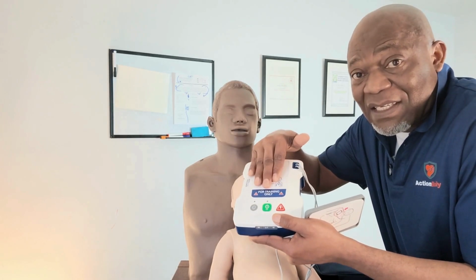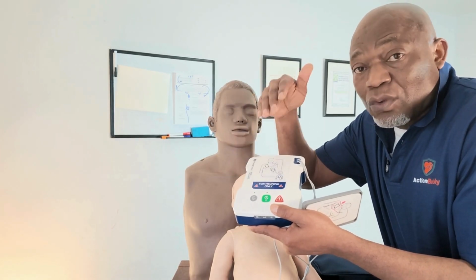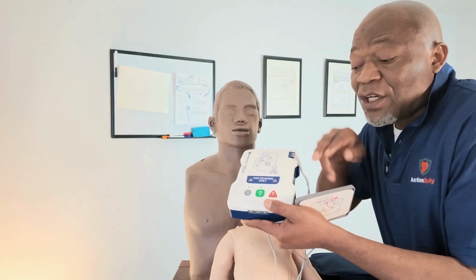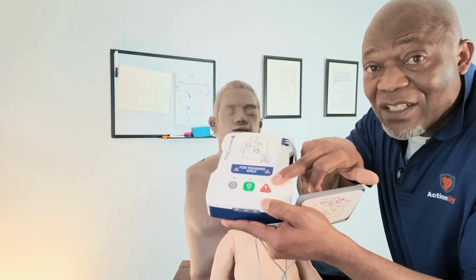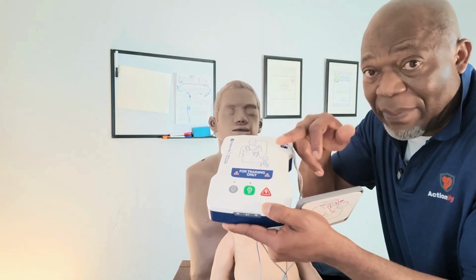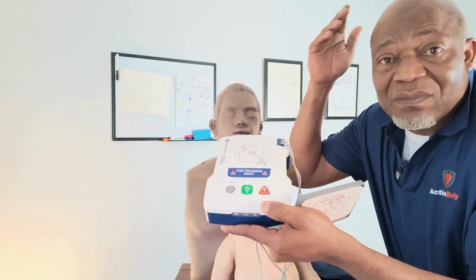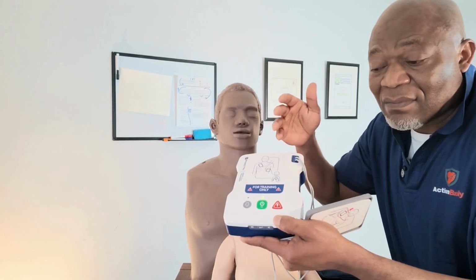And as you can see, I'm repeating myself: until you follow the first process that the AED has requested, you will not be able to go on to the next step, whereby you deliver the shock on the person. So that's why, as soon as you put it on: Adult patient. If the patient is a child, press the child button.